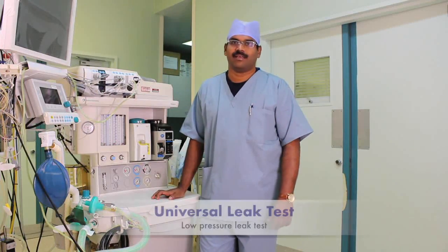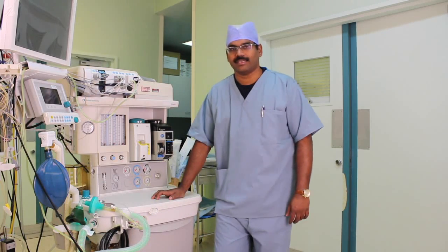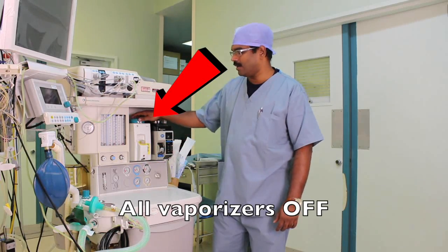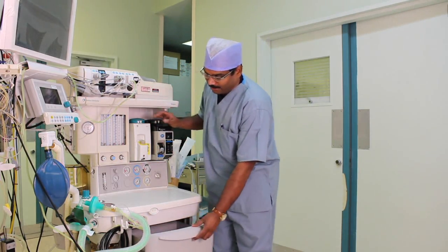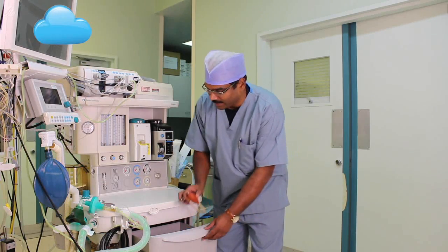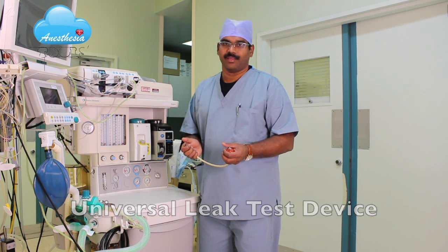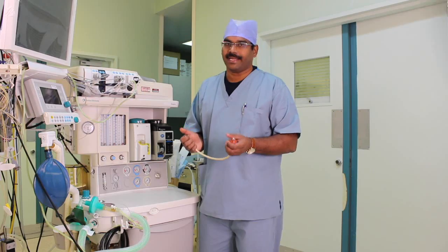The next step is the low pressure leak test. Before you start, make sure that all the flow meters are off, all the vaporizers are off, and you need a low pressure leak test device — also called the universal leak test. This device has a suction bulb and an inlet. The first step is to check this equipment for any leak.